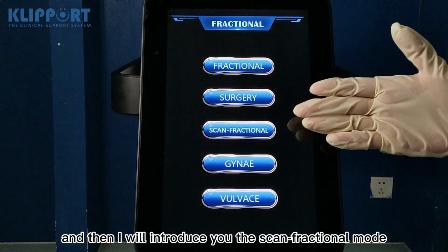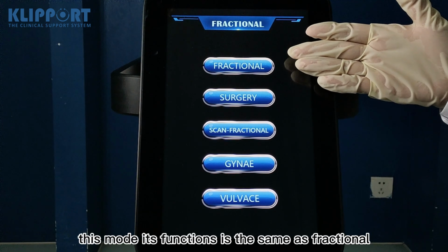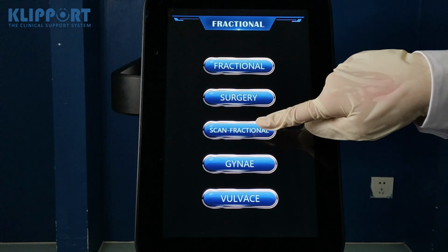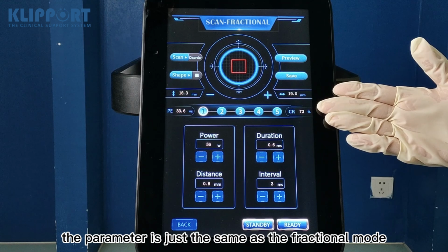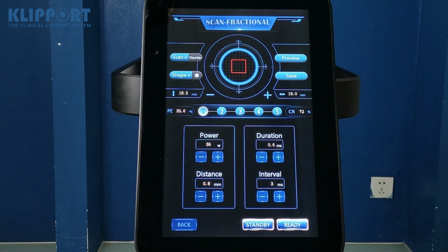And then I will introduce you to the Scan-Fractional mode. This mode's function is the same as fractional, but we use this mode to do large area skin rejuvenation. Now we click it, and in this interface, you can see the parameters are just the same as the fractional mode, and you can adjust them according to your need.